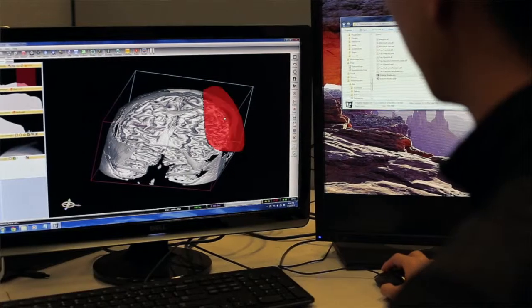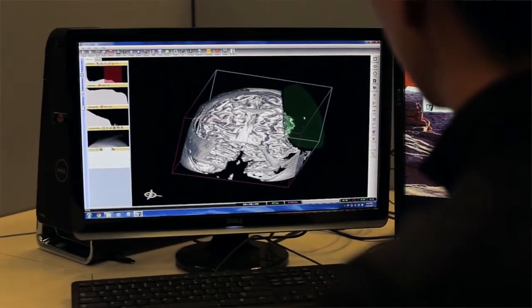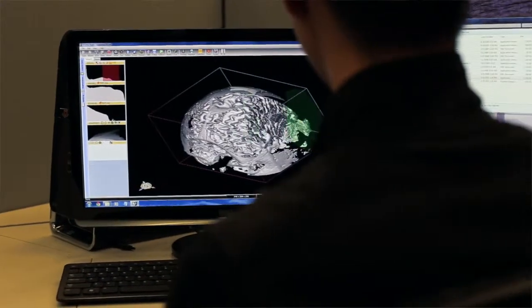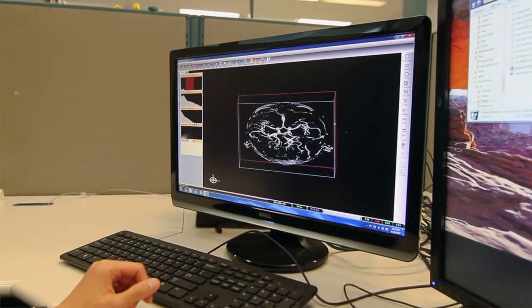We targeted to create a set of interactive tools to sculpt, open, peel the volumetric data set 3D images in a very intuitive way to have access to the internal organs, and then we have a set of tools for segmenting those organs and extracting from the entire volume sets.